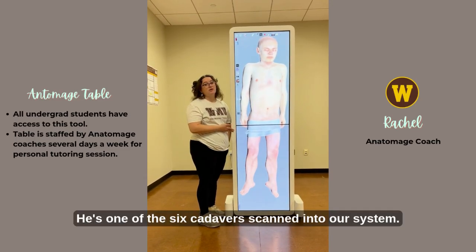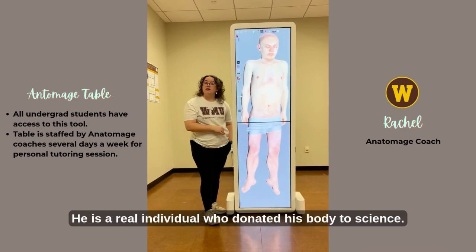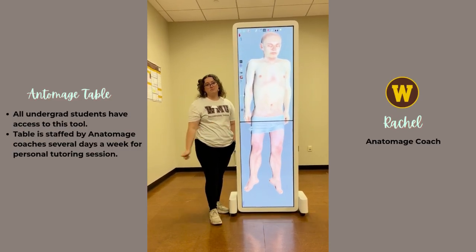This is Victor here. He's one of the 6 cadavers scanned into our system. He is a real individual who donated his body to science. We just treat him with the utmost respect. And for purposes of today, we're going to be focusing on Victor and his different structures.